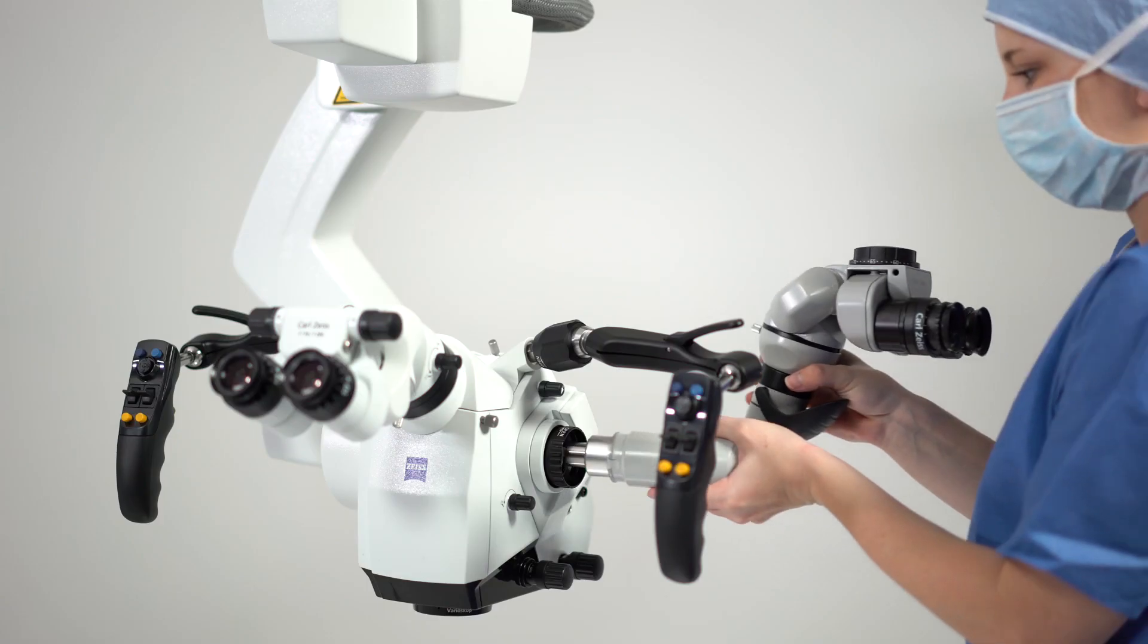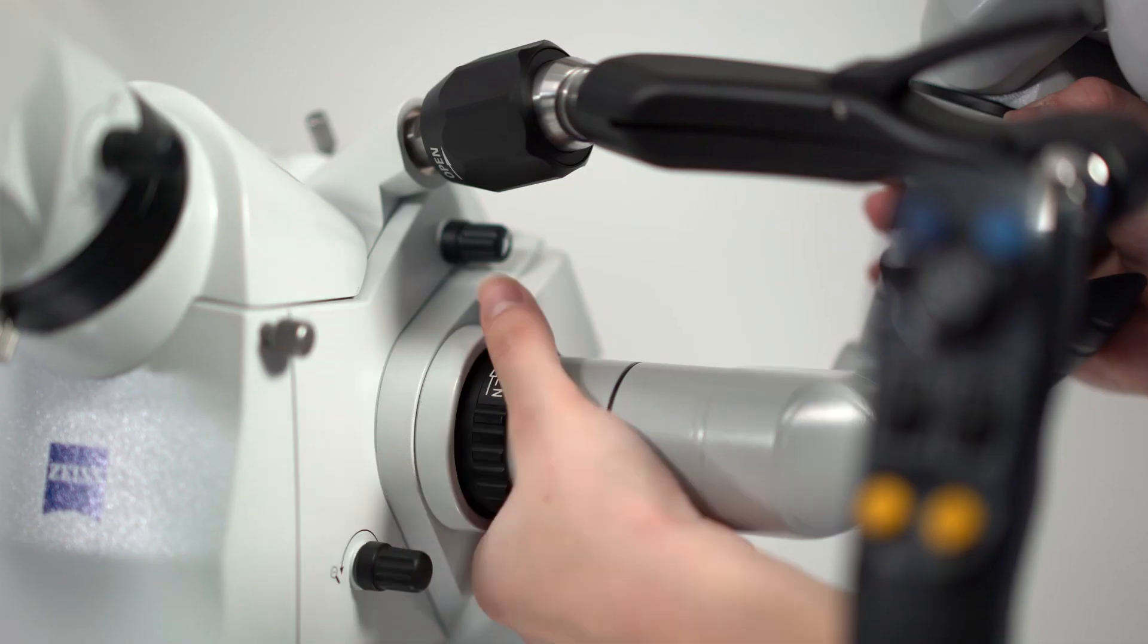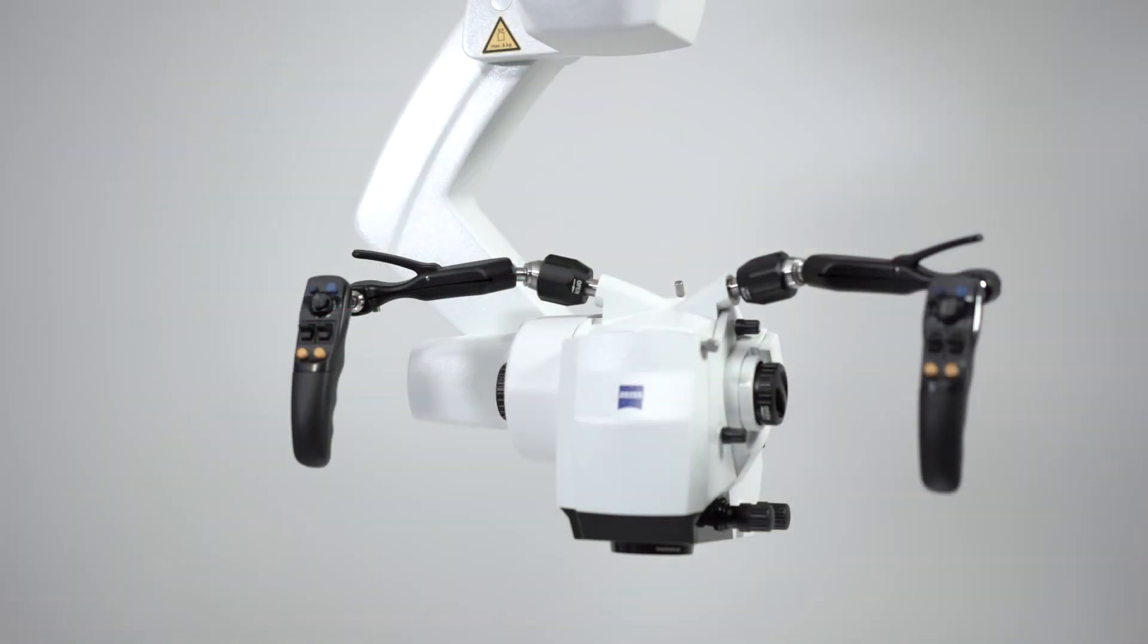Before draping, configure any oculars required. For a purely digital approach, no oculars are required.